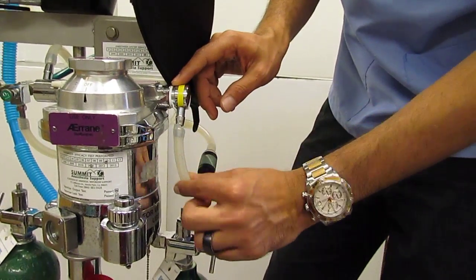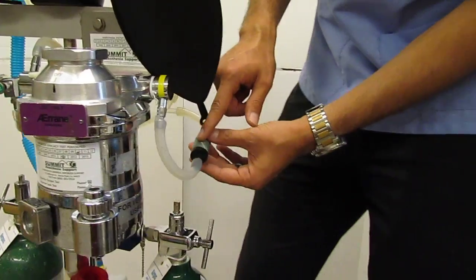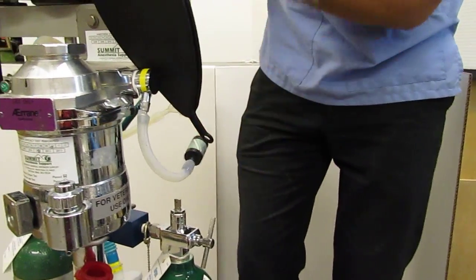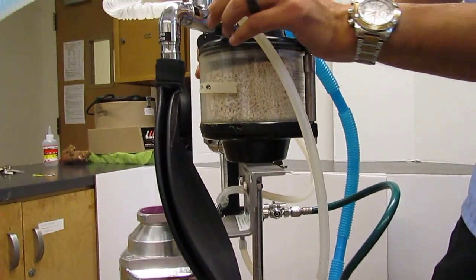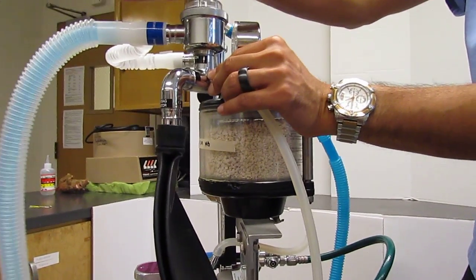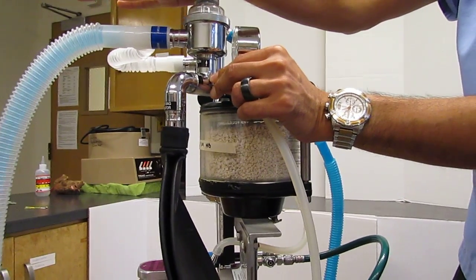So, as I take that through here, my outlet then comes up through here and into my inspiratory, my one-way, unidirectional inspiratory valve. Okay?